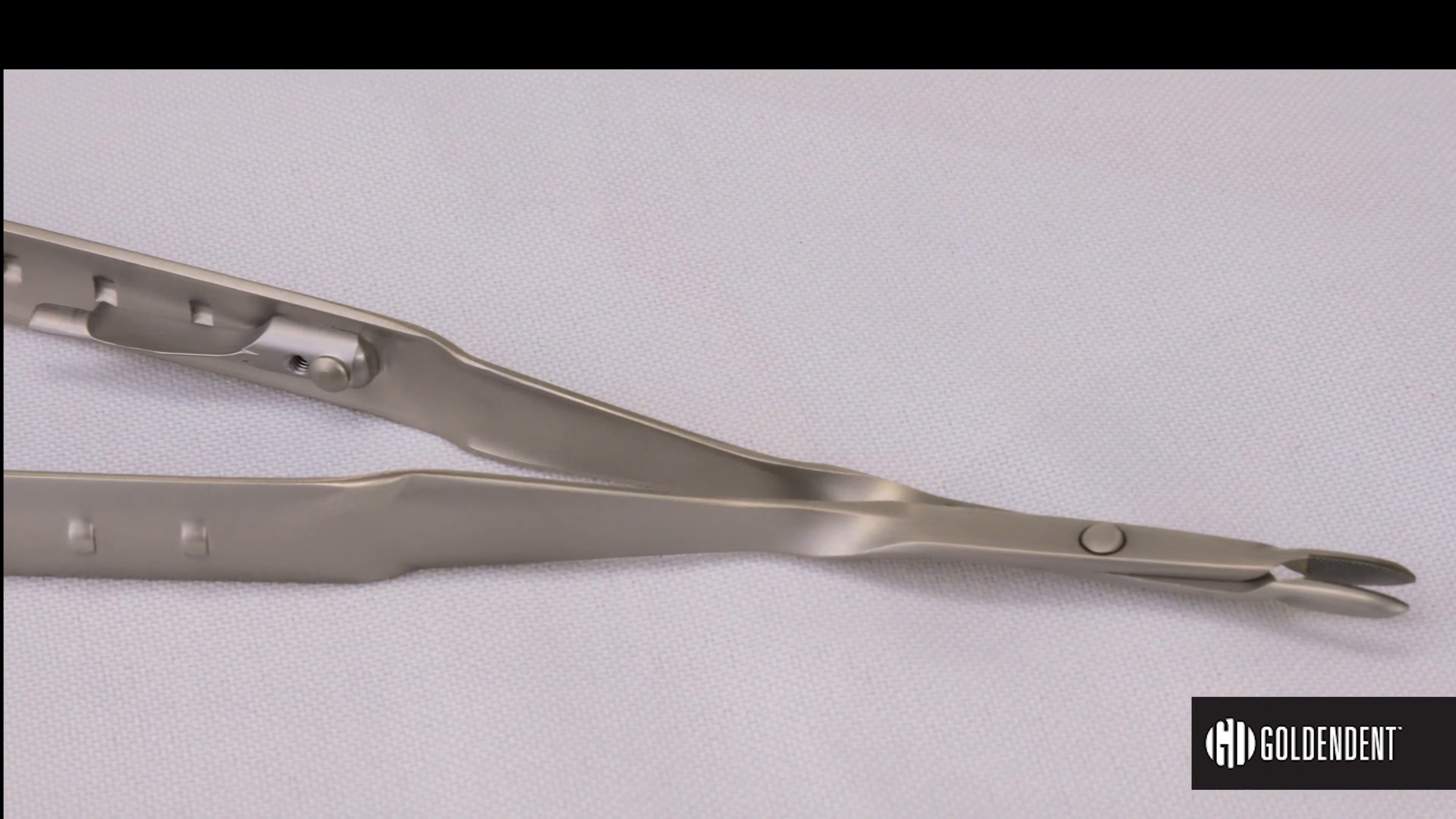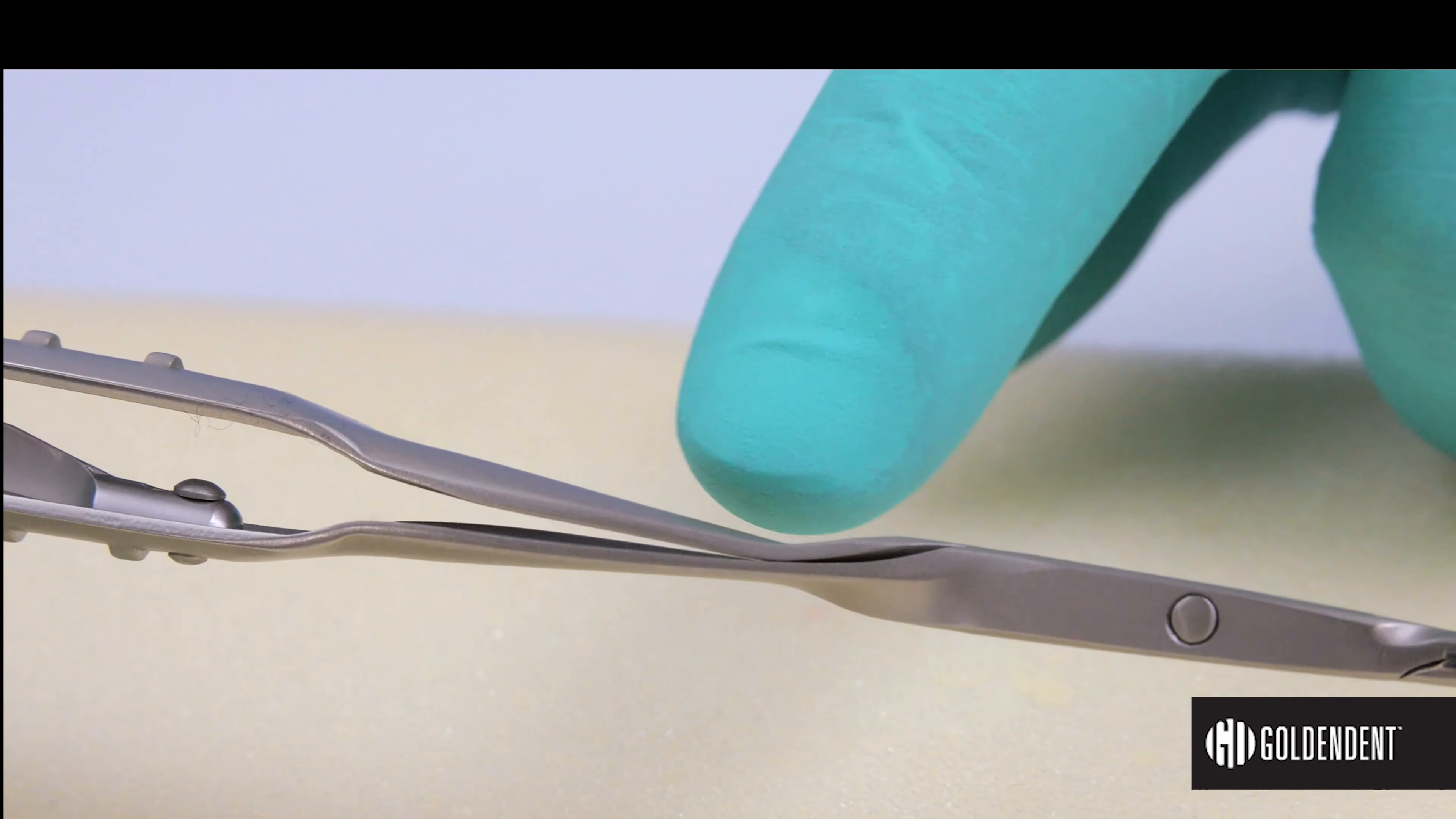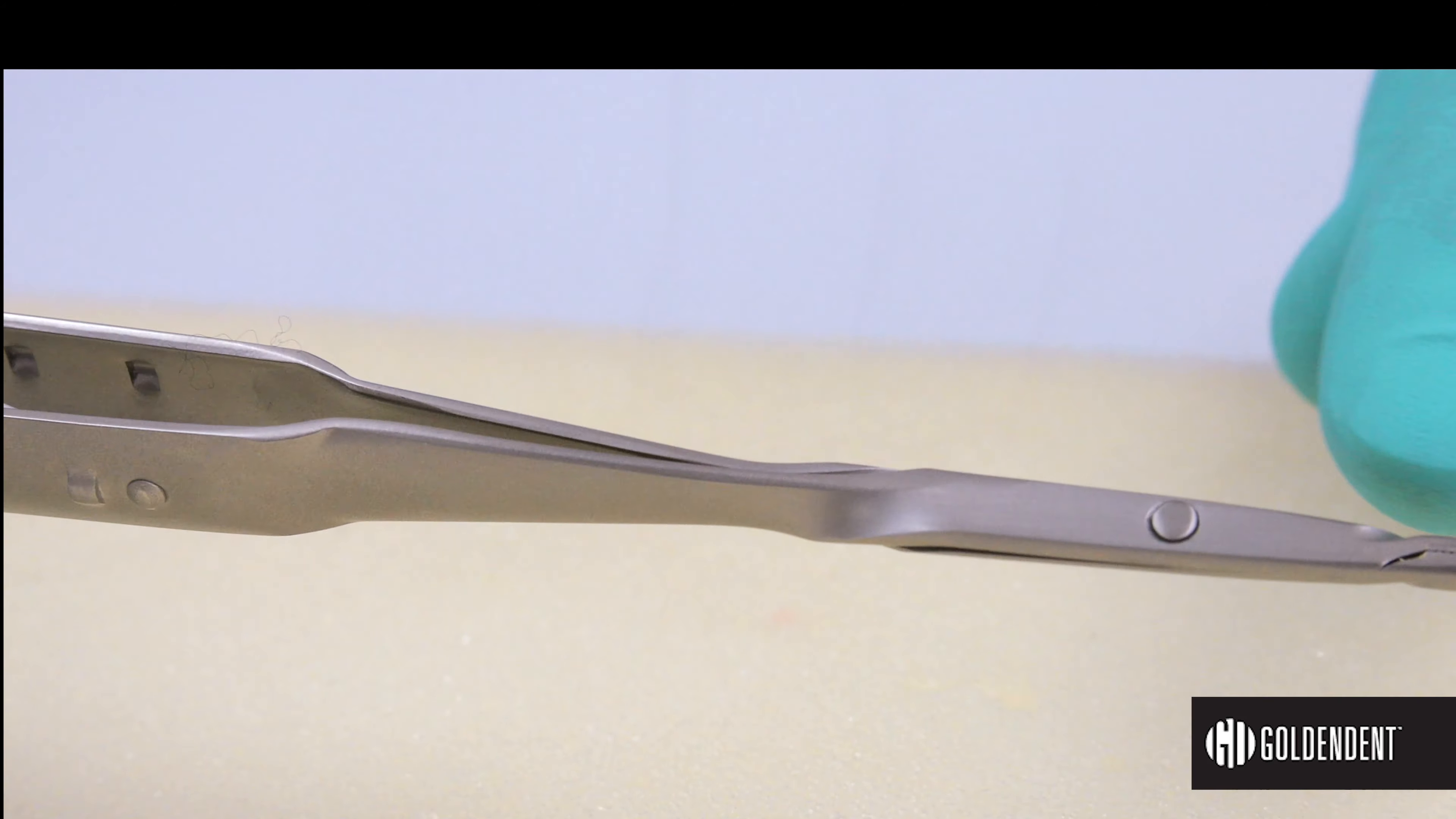Lastly, these instruments are constructed with a joint where sutures often get snagged while tying a knot. The new snagless needle holder has addressed all of these issues.